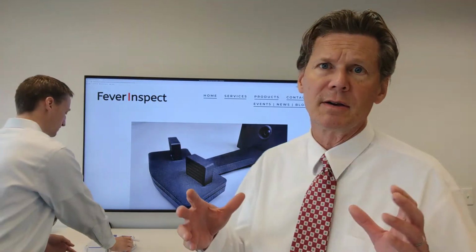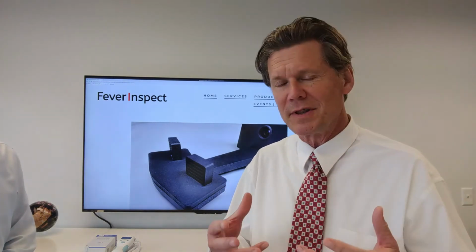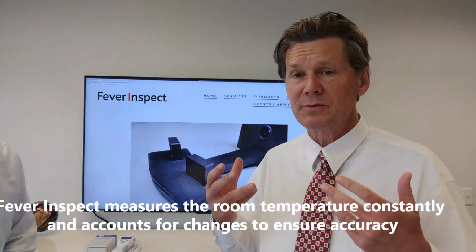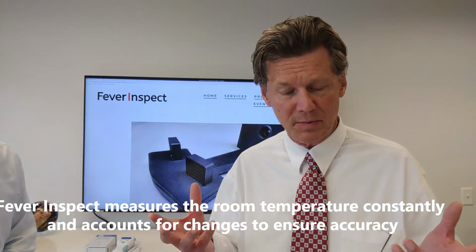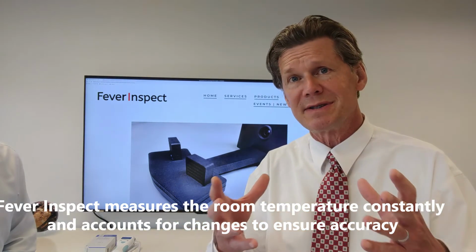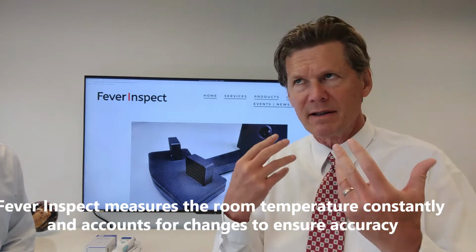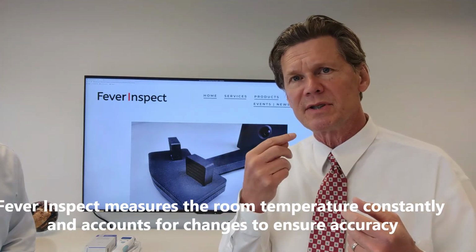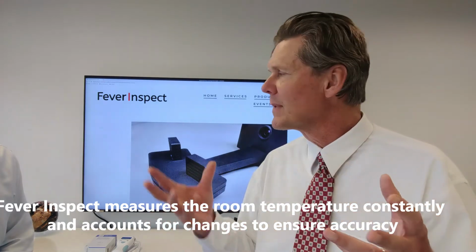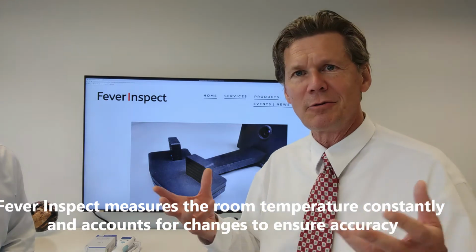So again, we're taking a very scientific approach, and one of the key aspects of doing that is to actually gather the data that's important, and that includes the temperature of the room. The oral thermometer that Eric showed you is the gold standard for a contained environment under someone's tongue, where it's going to capture the information correctly.